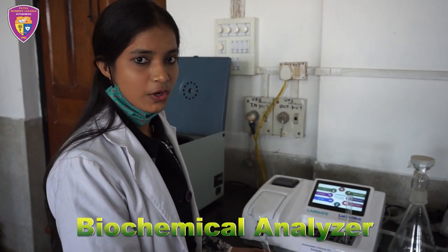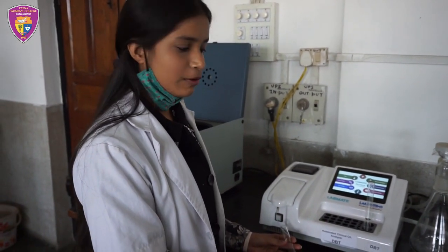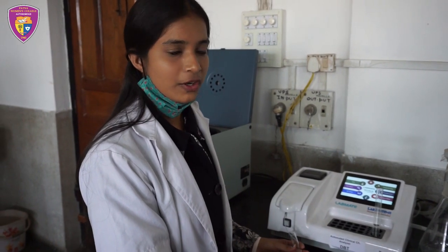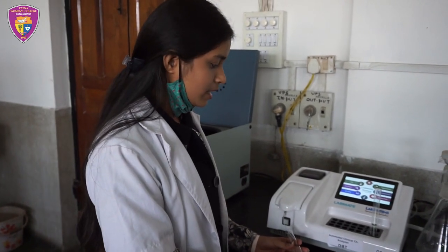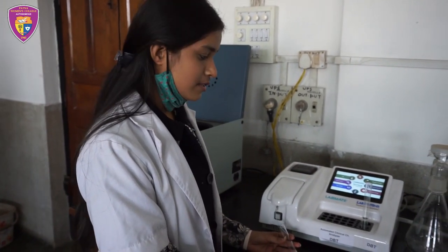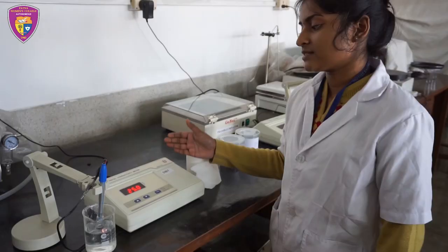This equipment is called an automated clinical chemistry analyzer. It works on the principle of determining the concentration of metabolites, electrolytes, proteins or any other drug in our blood, lymph, urine or any body fluid. Right now I am performing urine analysis to see the concentration of fluoride.